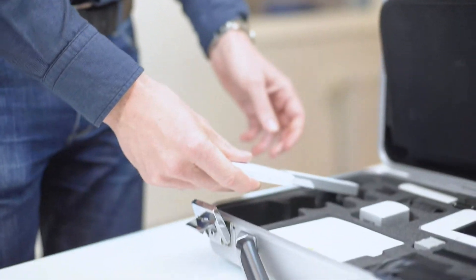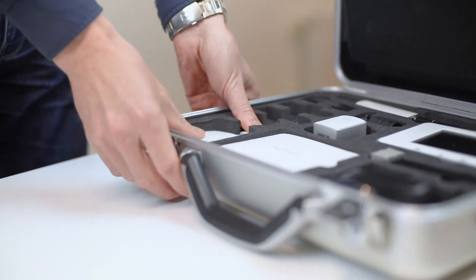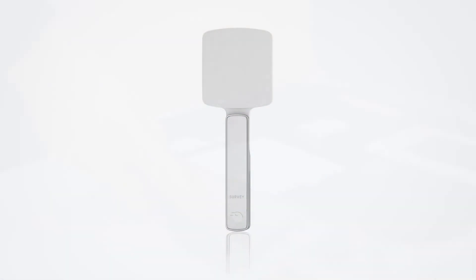Lastly, the fact that it's built on diodes makes it very small and very robust. It even fits together with all the other sensors and equipment in the X2 case. Thank you so much.